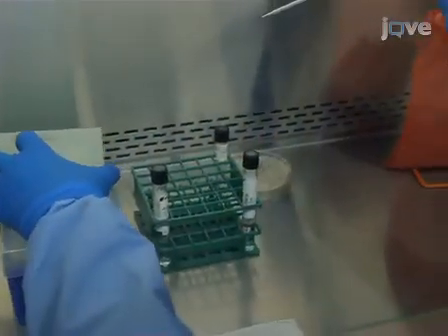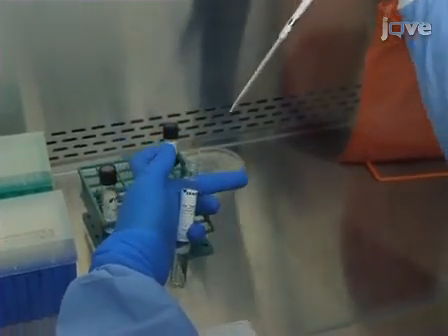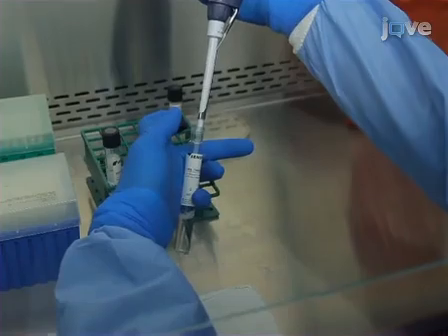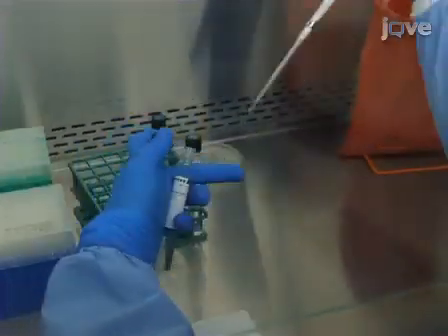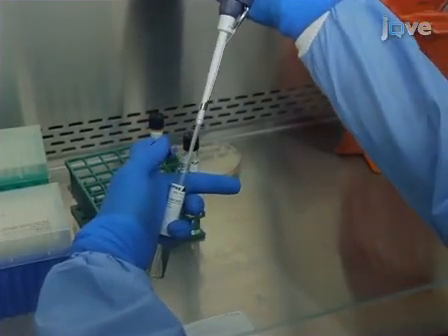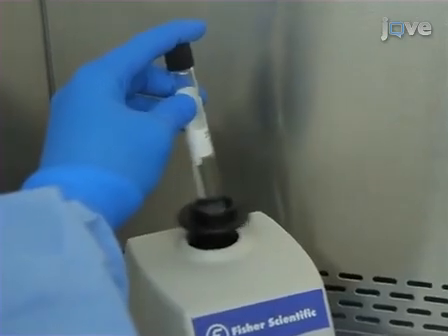Next, use a 200 microliter pipetter and a long aerosol-resistant pipette tip to remove 100 microliters of inoculum from the top third of the tube to avoid any clumps that are settling to the bottom. Inoculate the Middlebrook 7H9 broth. Slowly vortex the inoculated broth for 20 seconds.